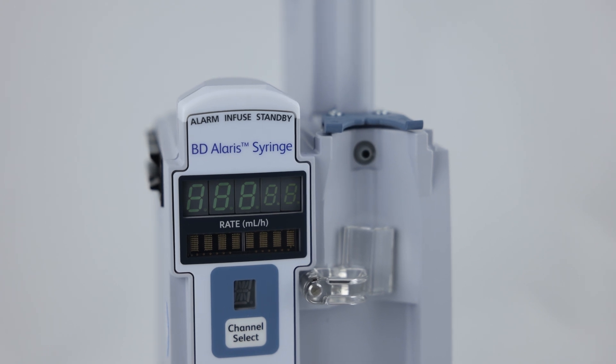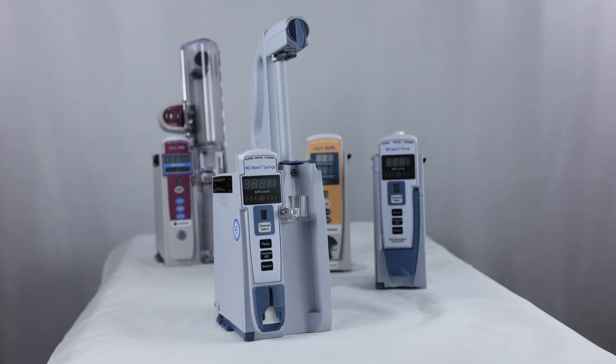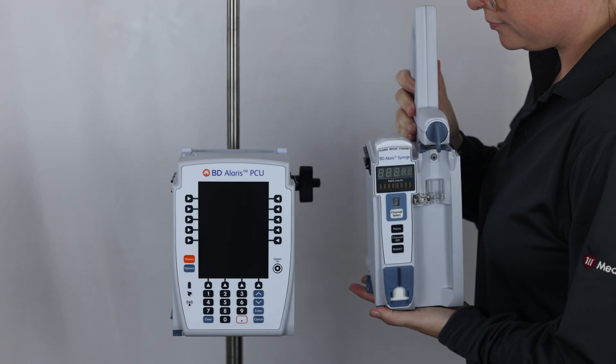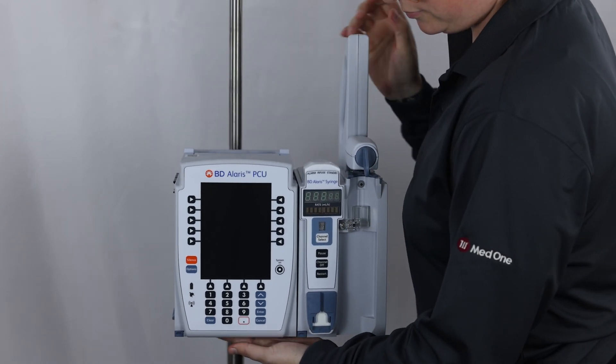The Alaris 8110 is the syringe pump module that is part of the modular Alaris system by BD. In order to use the 8110 module, it must be connected to the 8015 Point of Care Unit, or PCU.